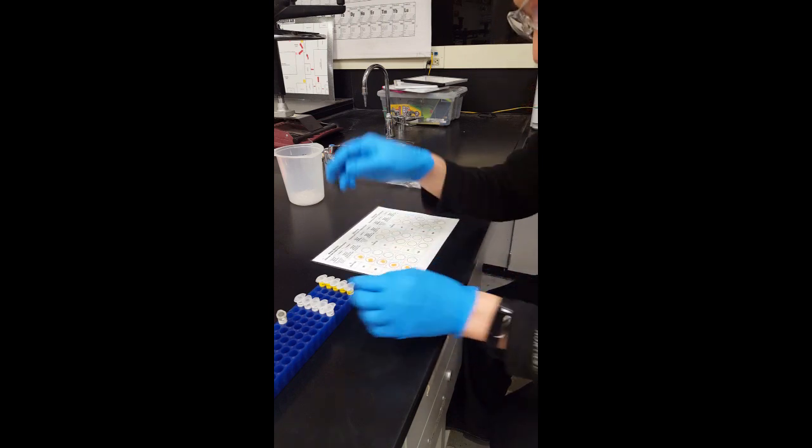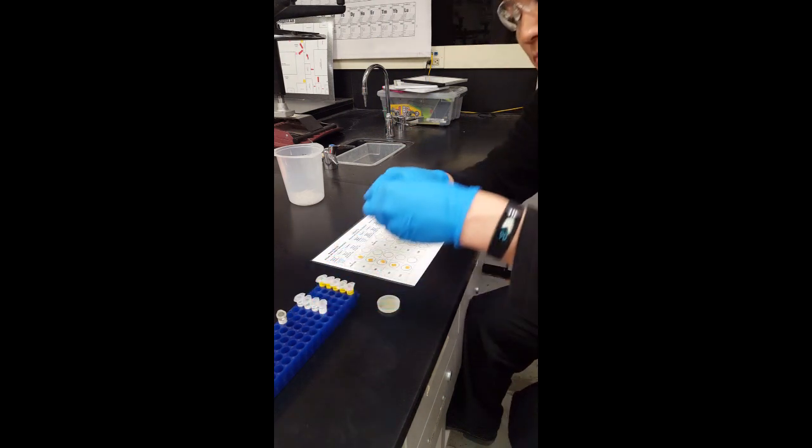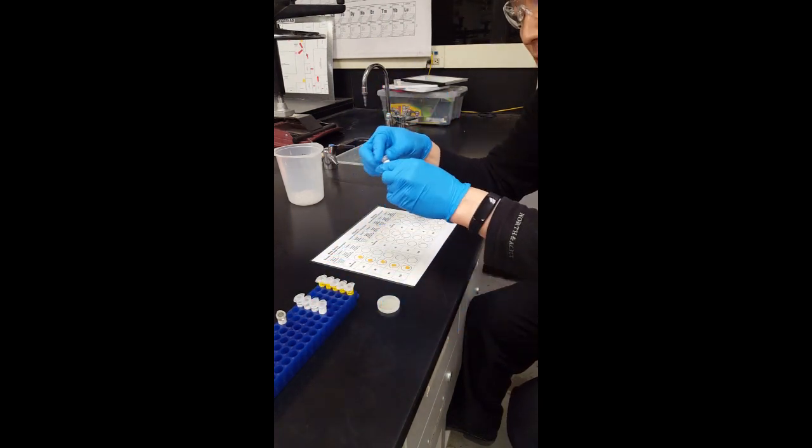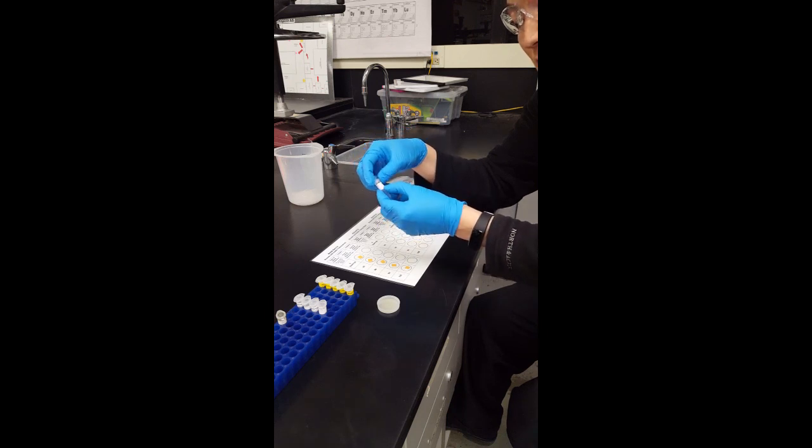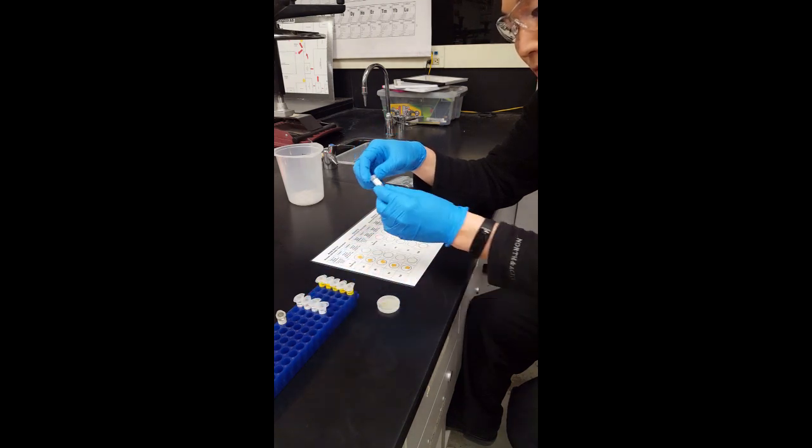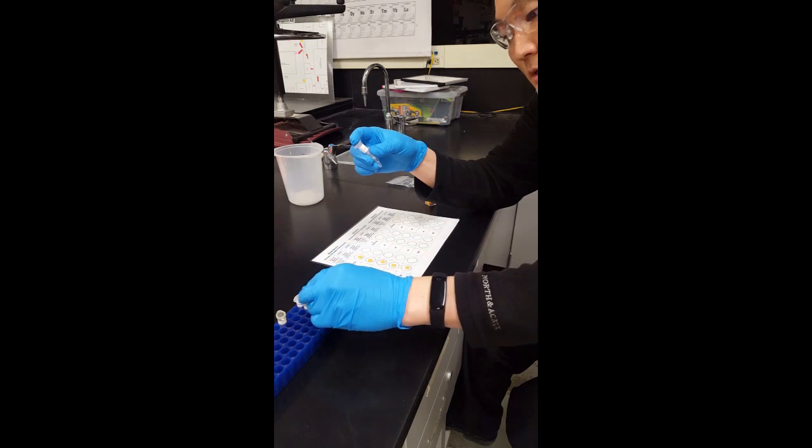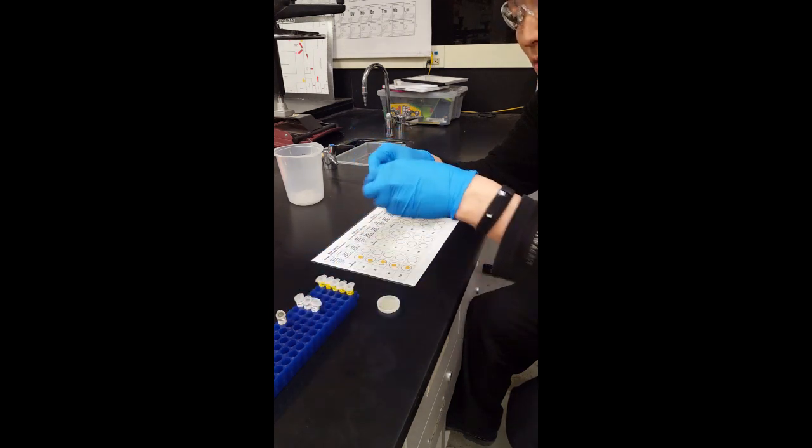And you're going to find these microtubes that are going to have Ana Garcia's plasma where it says GTT, so that's for the glucose testing. There's going to be 0 minutes, 30 minutes, 60 minutes, 90 minutes, and also 120 minutes.